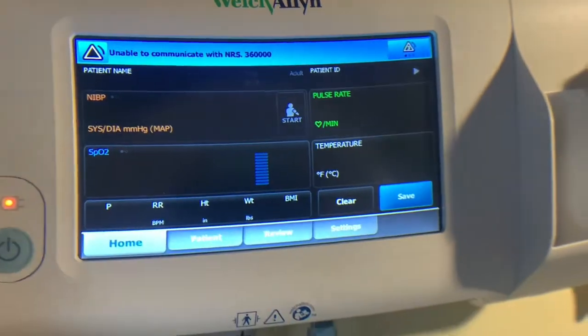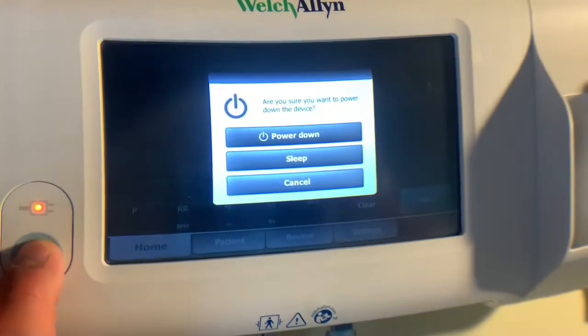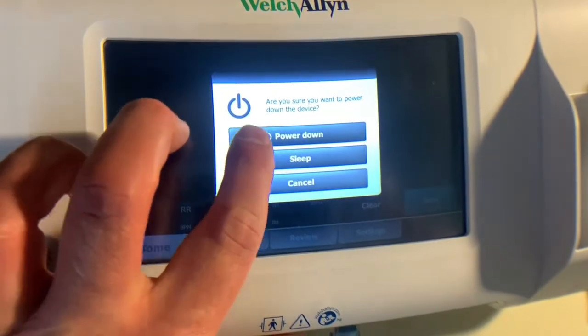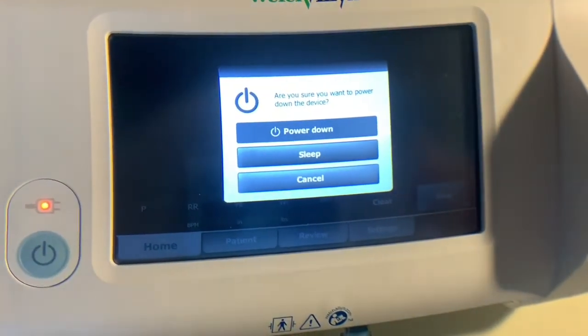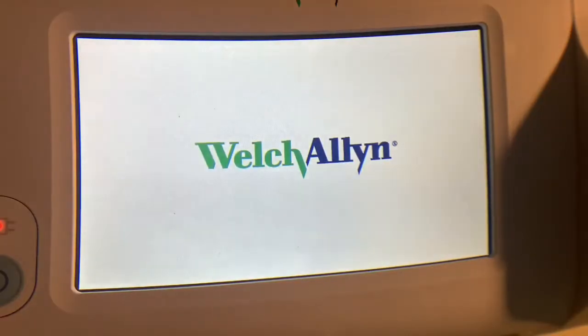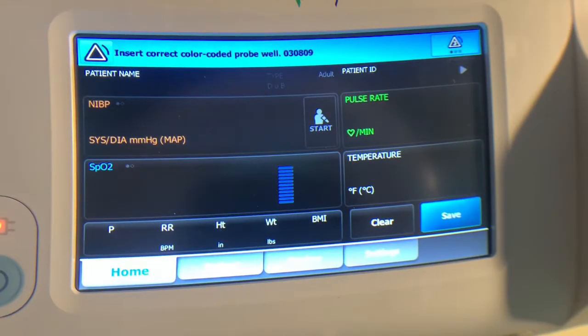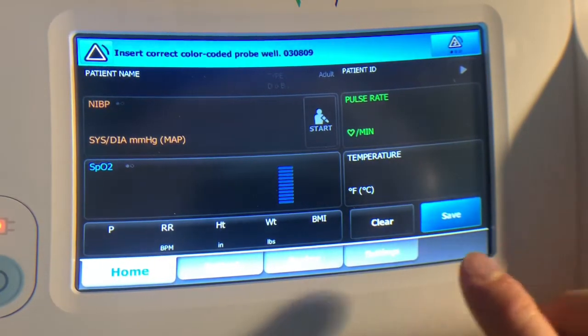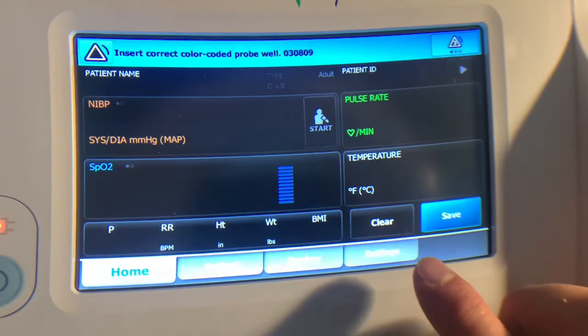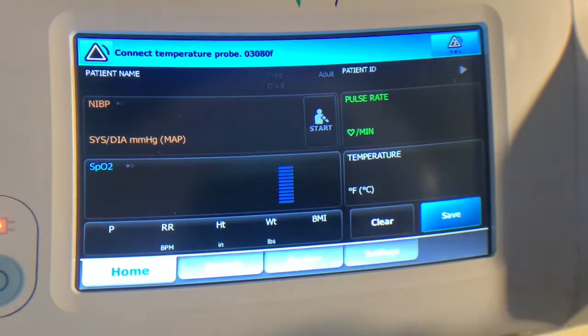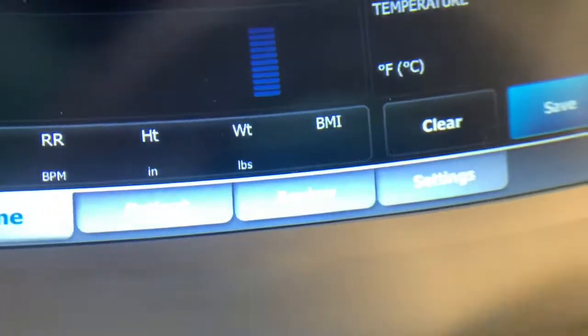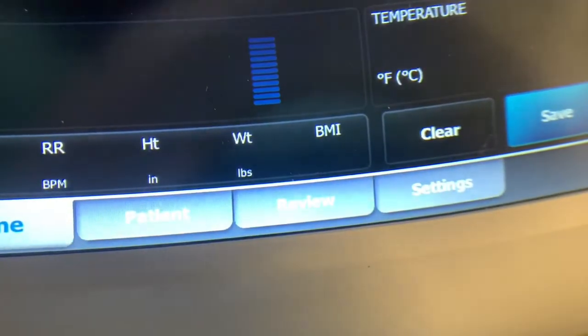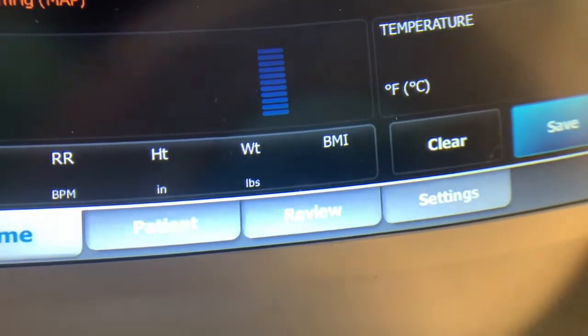What I can do is I'll turn this off, power down. And once it shuts down I'll restart it and come back to this when it's come back up. Okay, so now that it's done rebooting we can verify that it's saved the network information. We don't have to use the administrator or the privileged access code either.